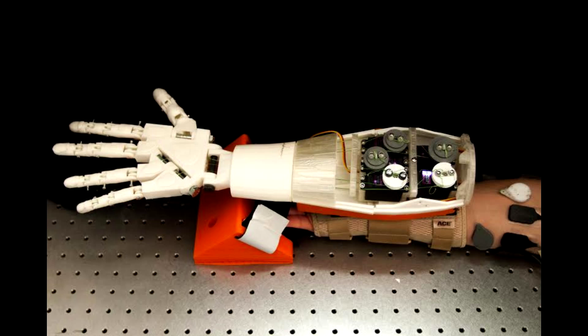In the future, we hope to extend this feedback to even more degrees of freedom and implement it on commercially available myoelectric prostheses.